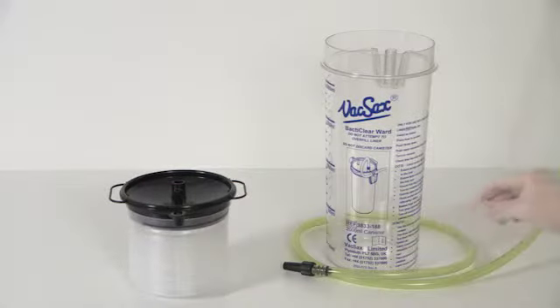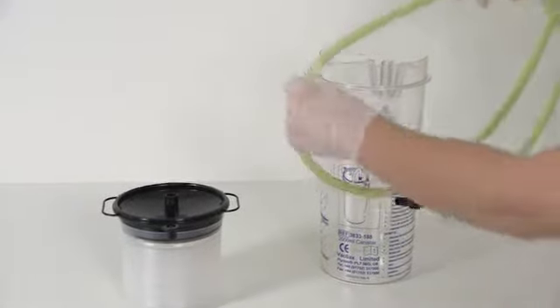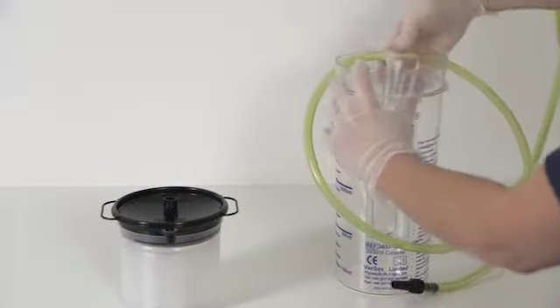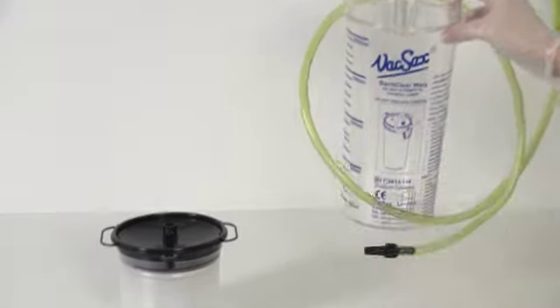Taking the yellow non-disposable vacuum tubing, insert the T-piece vacuum connector located within the tubing kit itself and press firmly into the port situated at the back of the canister.